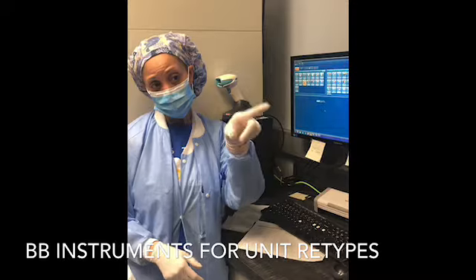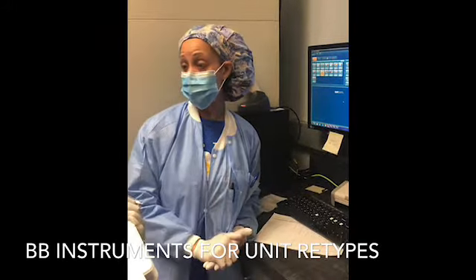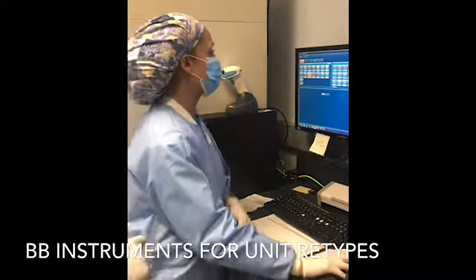And then you'll go and hit the assign profile. And you'll select unit retype. Okay, and then press save and start. So they'll be running in batches. Once they are finished, you will come to SunQuest.